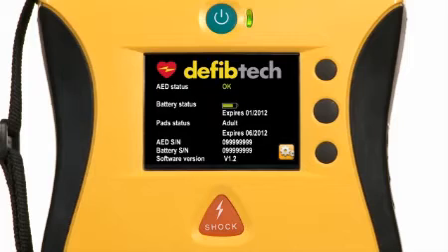The View tells you everything you need to know about its rescue readiness on one easy to read, instantly accessible screen. The only AED that does this. Pad expiration date, battery capacity, unit status, it's all here.